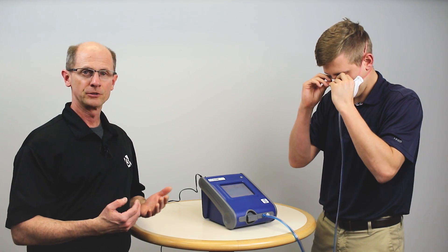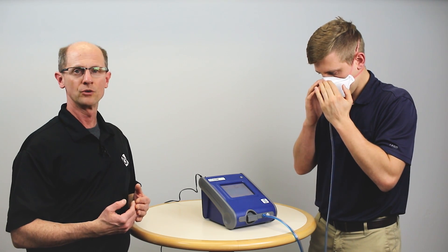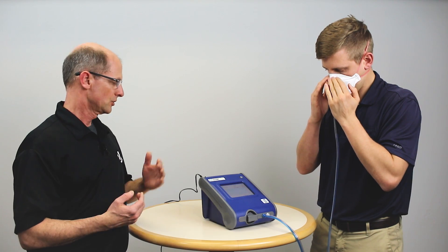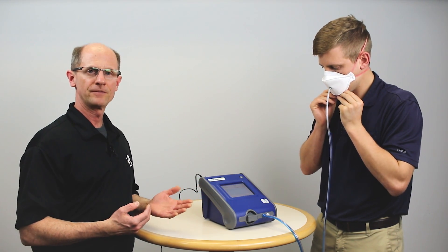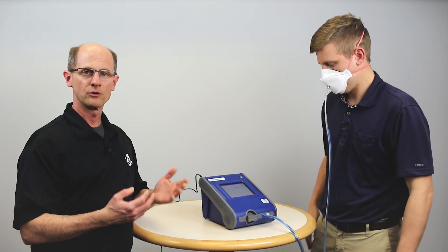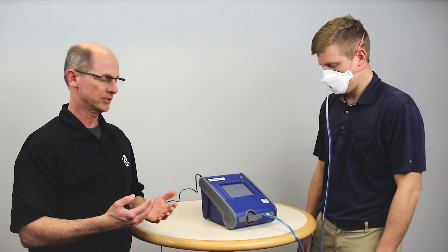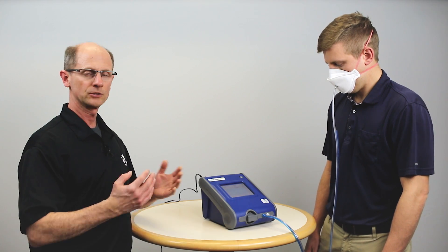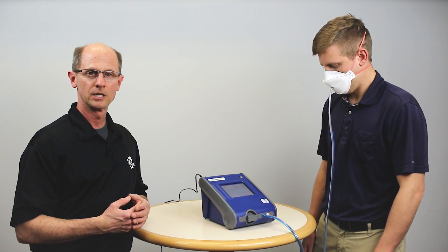With these folding facepiece filtering face piece masks, properly molding that metal strip over your nose is critical to providing a good fit. Using a tool like real-time fit factor display is a great way for Ben to learn how to adjust that and make it fit his face the best way possible with real-time feedback, without having to take the whole seven minutes of a fit test.